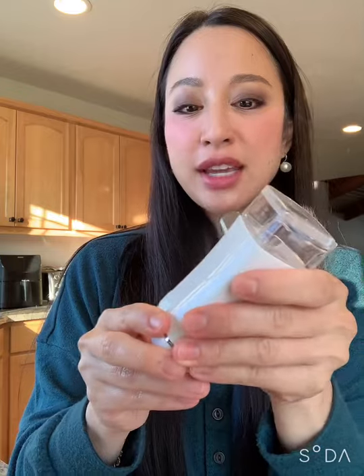The battery life on this nebulizer was incredible. It came in the box fully charged already, and we used it every day for a full two weeks before I needed to plug it in. I initially did that because I thought it had died, when actually it hadn't — it was because I was overzealous in my nebulizer hygiene. And I did this on video too, so don't do that.